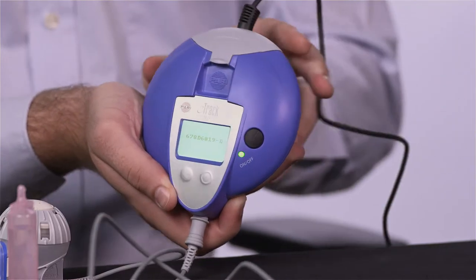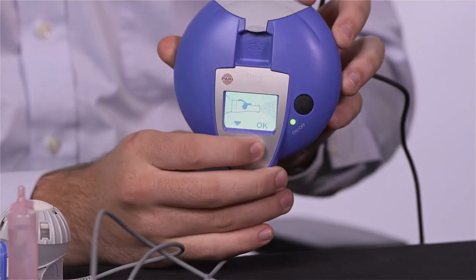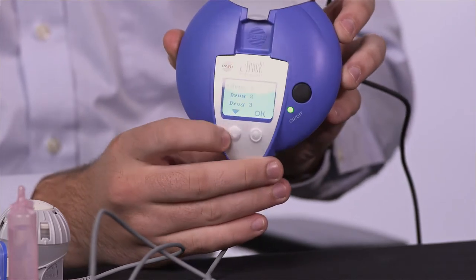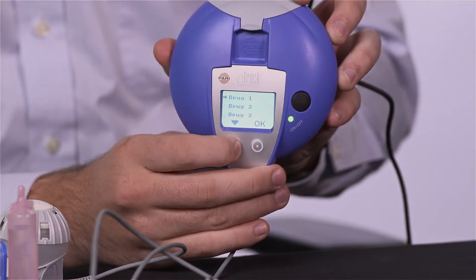Once you turn on your eTrack nebulizer, you'll be asked to enter a drug number. The numbers that match to each drug will be listed on the base of your eTrack nebulizer. You should follow the directions that are shown on the nebulizer.